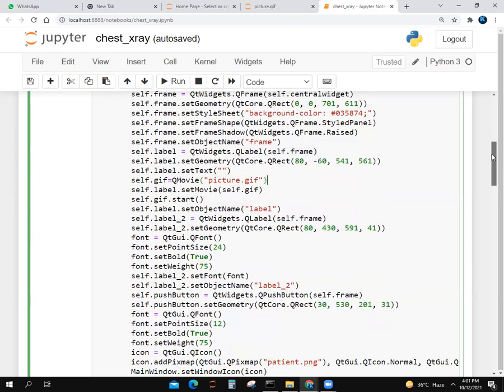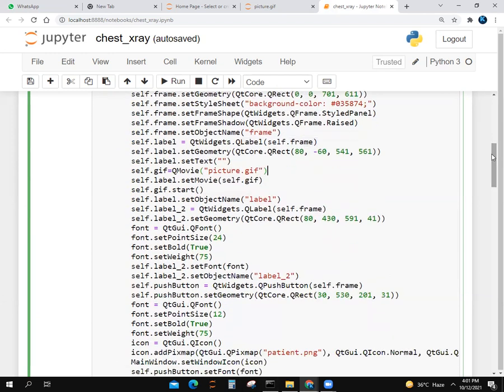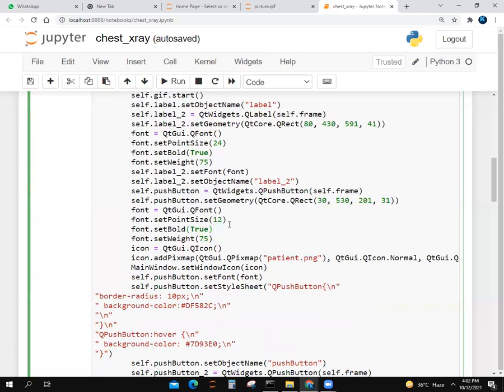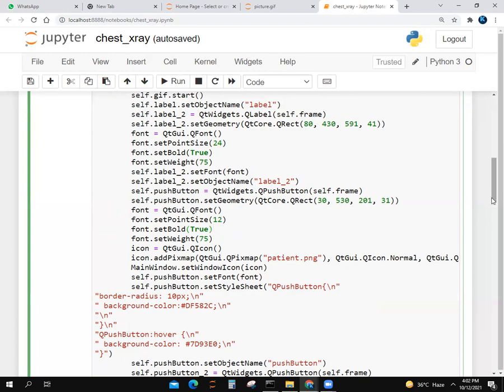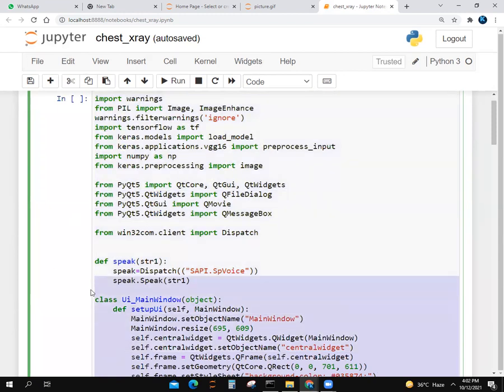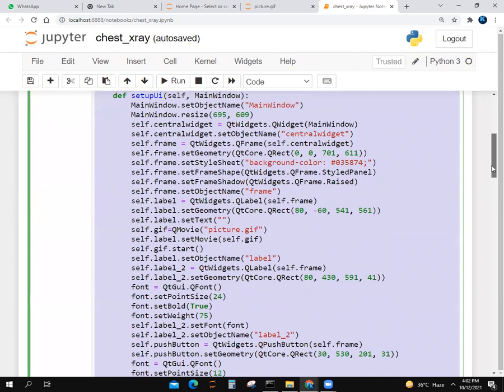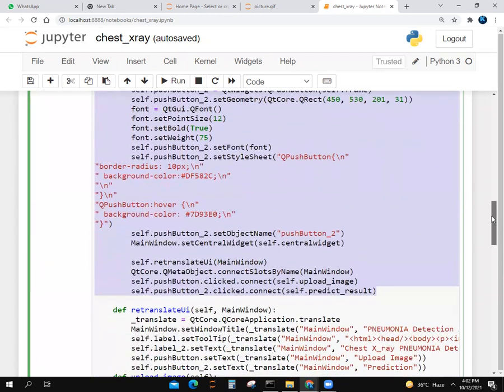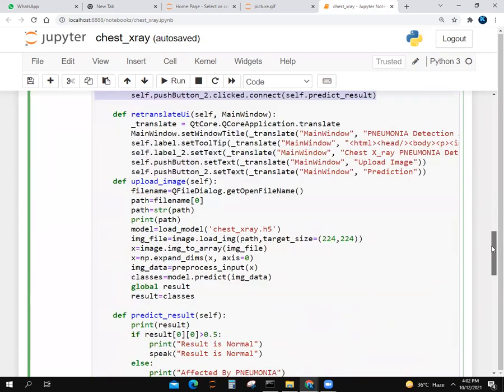There's patient.png. If it's not working on Jupyter, there would be an image of a patient. In this whole code, we used GUI. We put in a GIF. After that, we changed the button color and so on. We make a function.